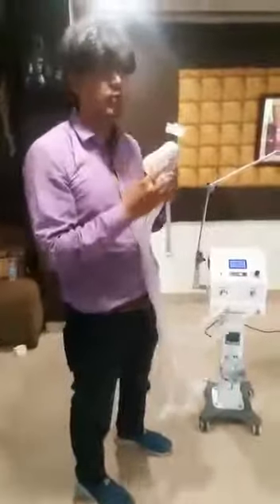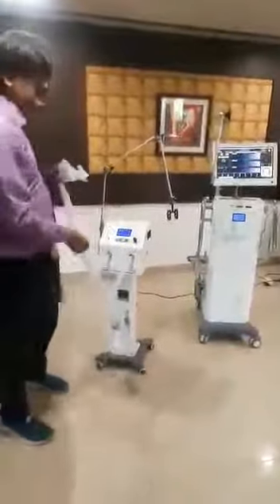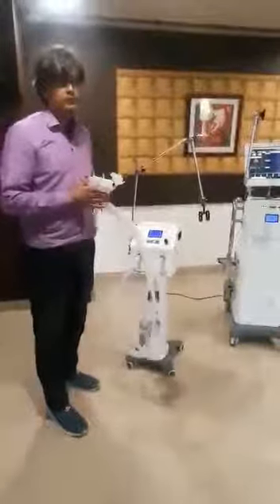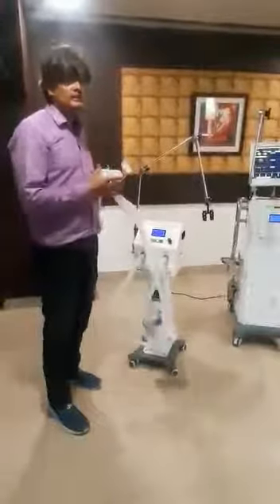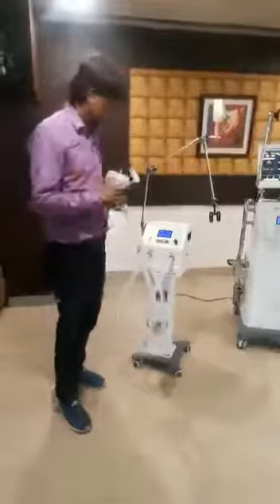So I have to put these pipes, set the pressure, set the flow rate as per the body weight, and put the mask on the patient. Once you put it on the patient, based on the patient's comfort or the saturation value on the monitor, we just have to tune the flow values here. With that change, you can increase the saturation value from as low as 20 or 30% to 80 or 90%.